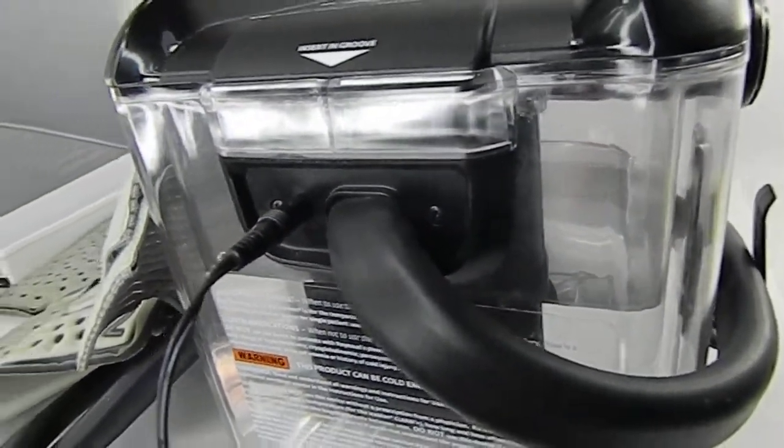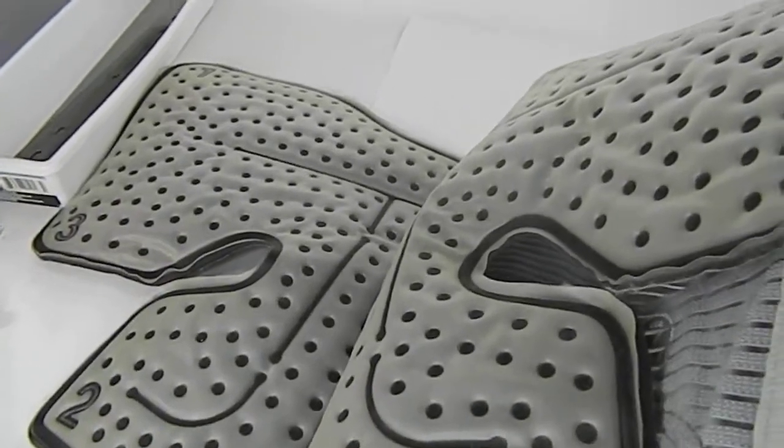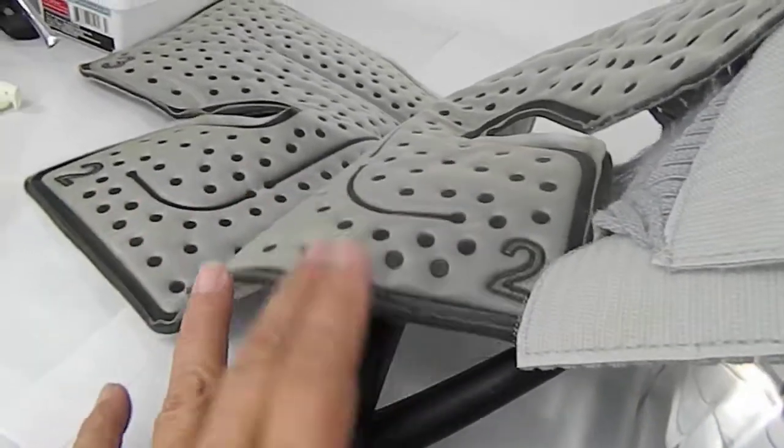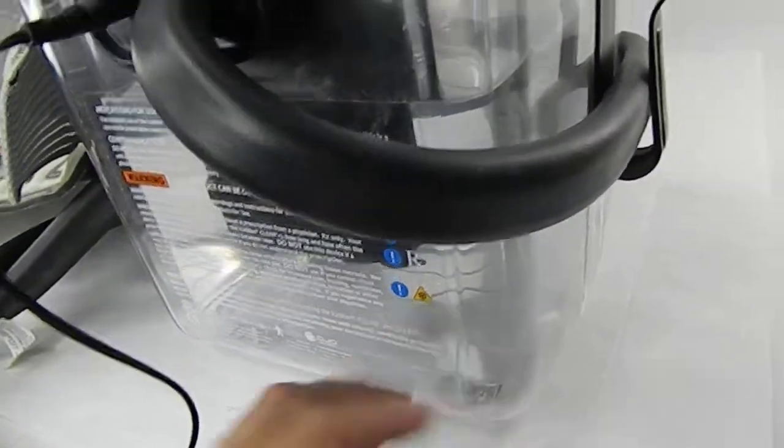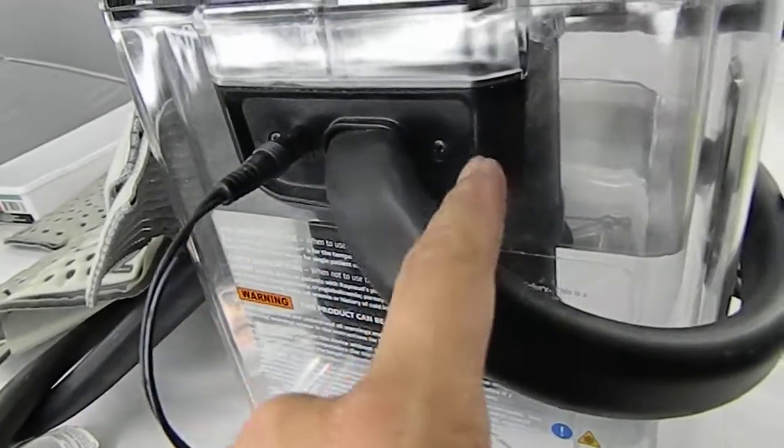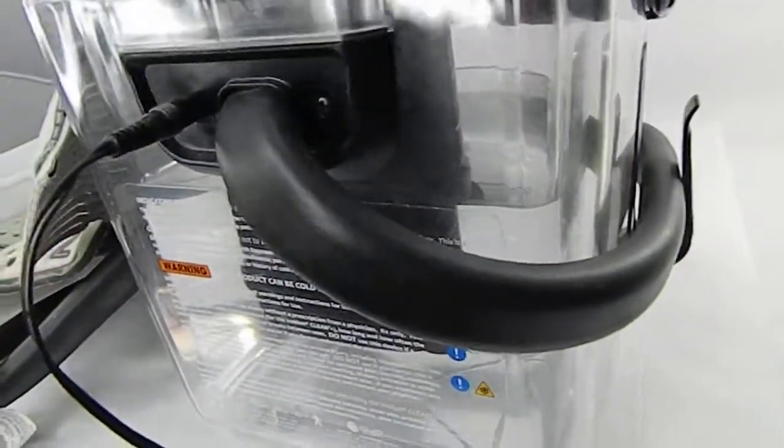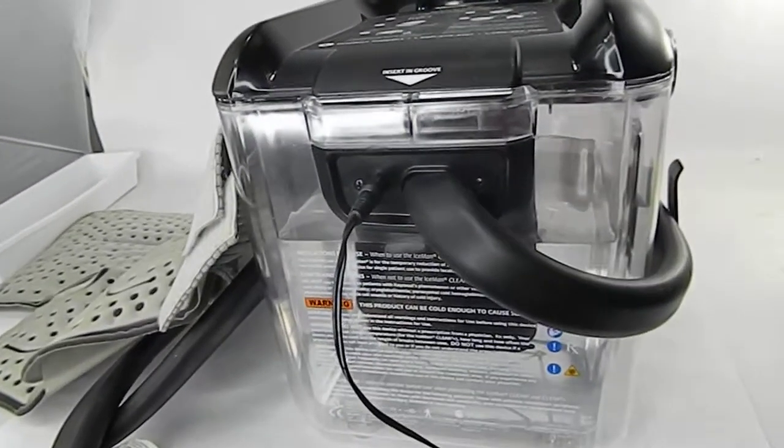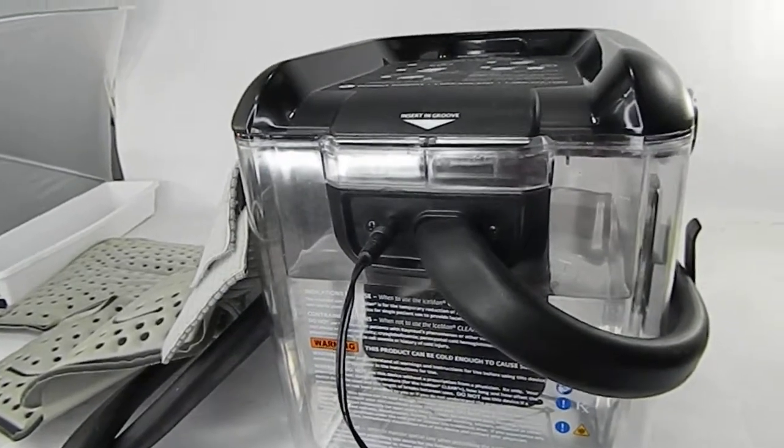See, nothing's happening. So maybe you can use this part, maybe that's what you need, maybe a lid, maybe just the bowl. You can unscrew this here and replace it, or if you have somebody that can tinker with it. It will be for sale as is, no returns, final sale.